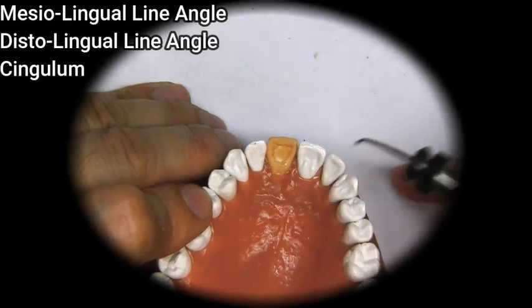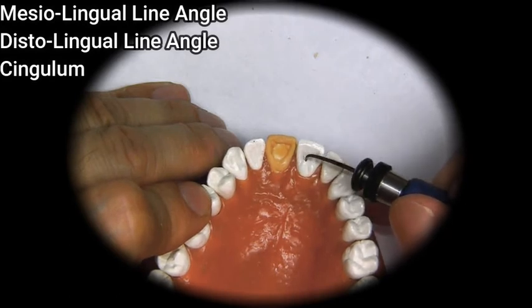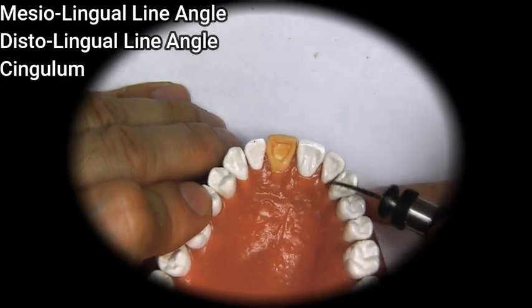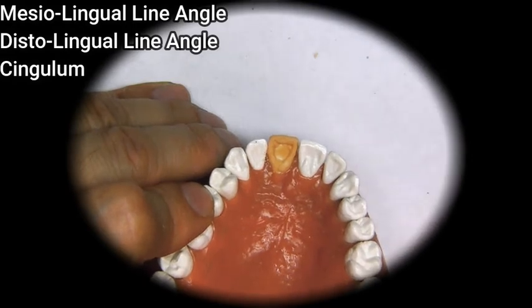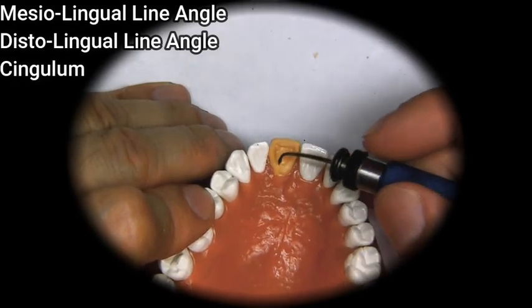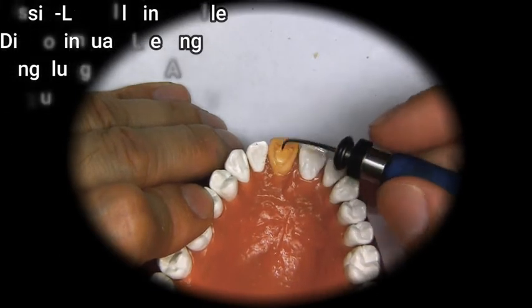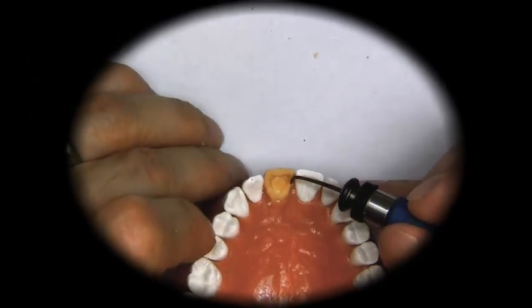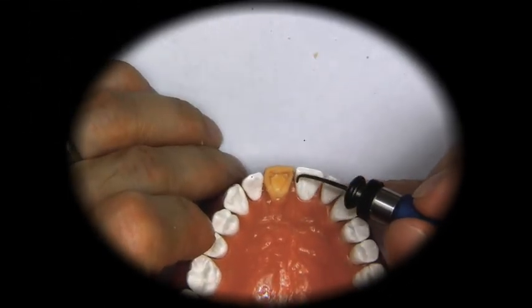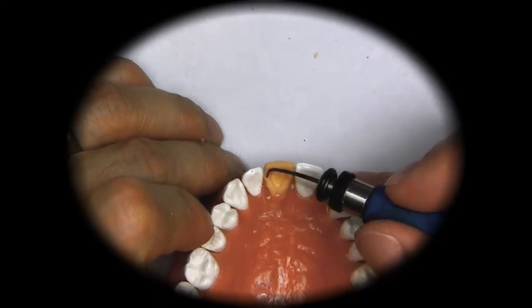And from that little groove, we can maybe form some of these ridges so that they look to the tooth adjacent. So here's our cingulum. Now if you notice, this marginal ridge is on the same plane as this, and this marginal ridge here is on a similar plane to this.